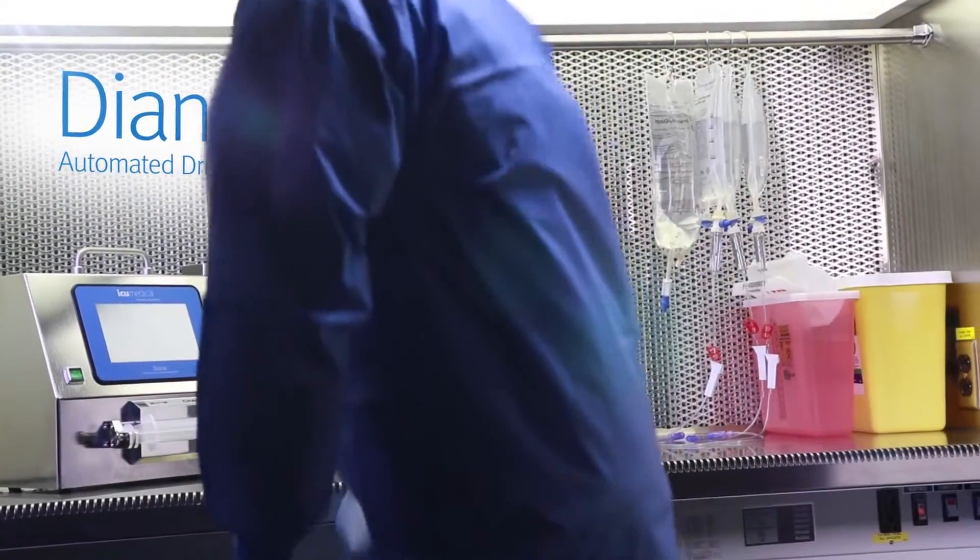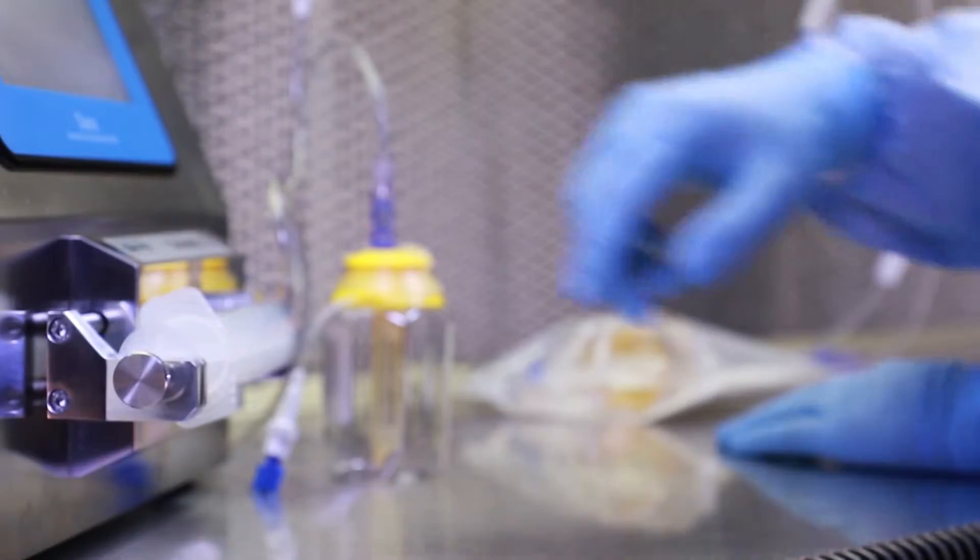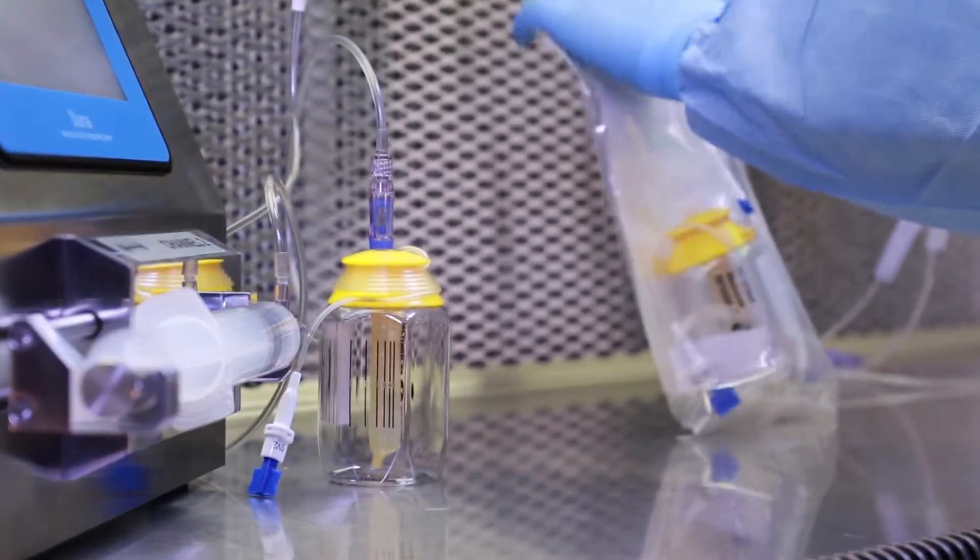That's why we designed the Diana Automated Drug Compounding System to take the physical stress away from technicians and help you minimize the risk of repetitive stress injuries.